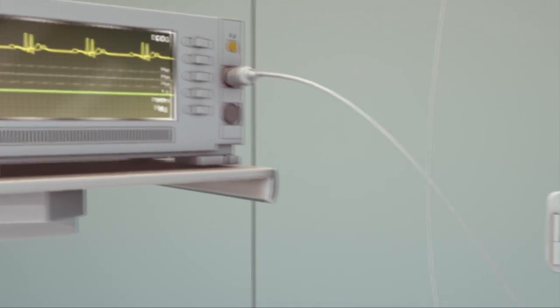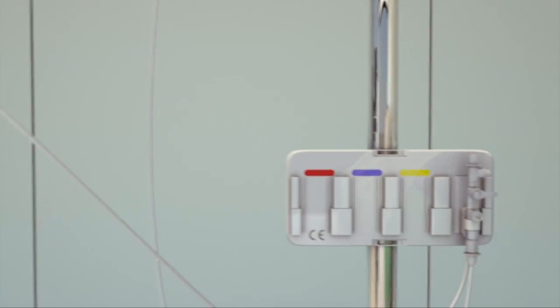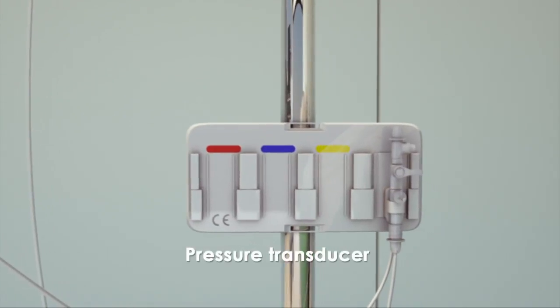It is the only device capable of measuring a number of otherwise inaccessible hemodynamic parameters.